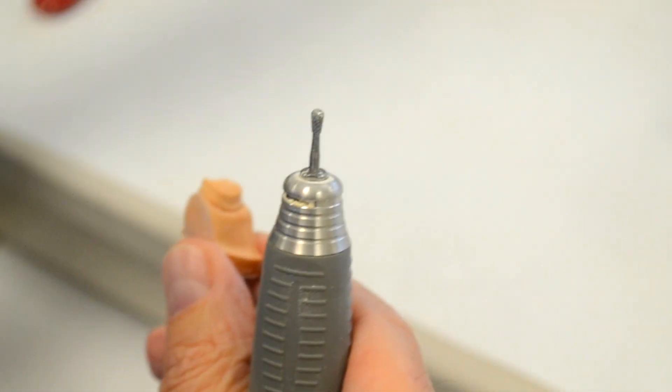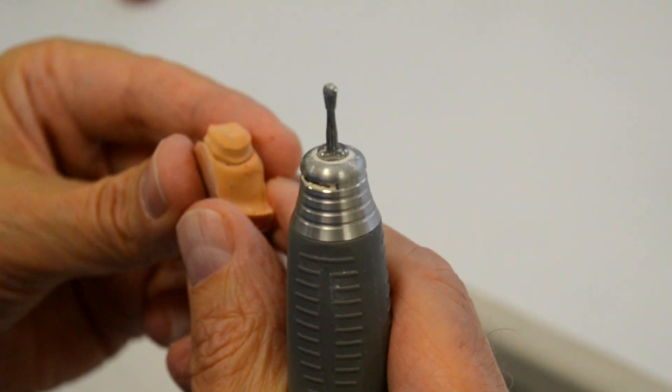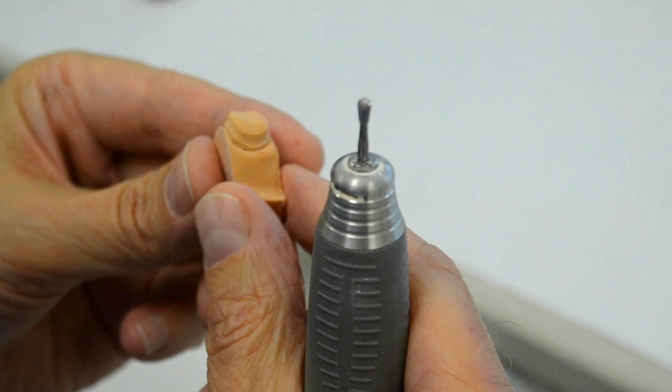I would suggest when die trimming, use eye protection because this will kick up some dust and particles, and probably a mask is also a good idea.